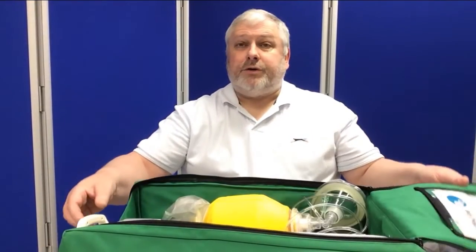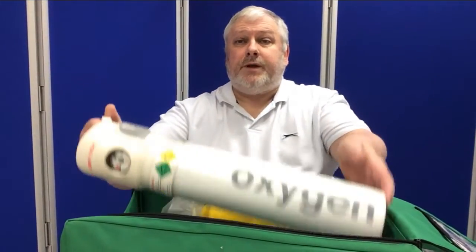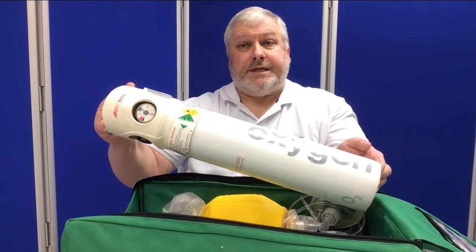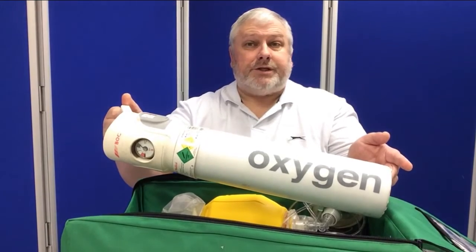There are a variety of cylinders out there, different sizes, different manufacturers, and they do require slightly different interventions when using them. The one we're going to look at today is the BOC size CD. This is a fairly common size for emergency use.